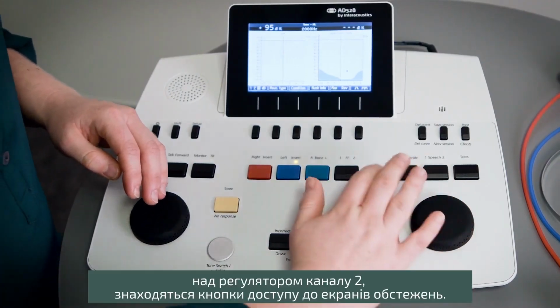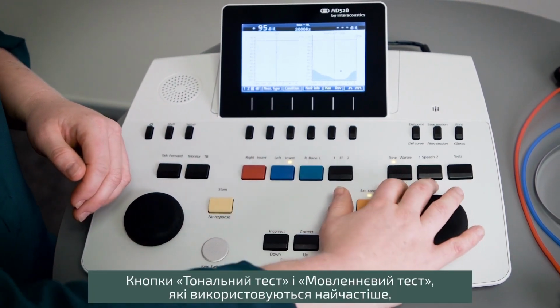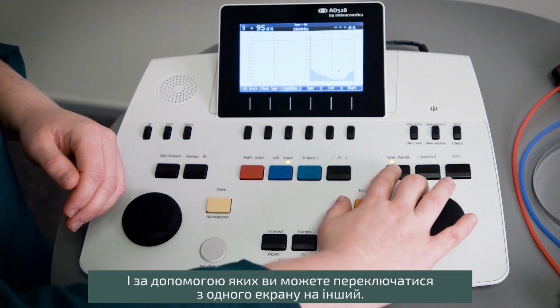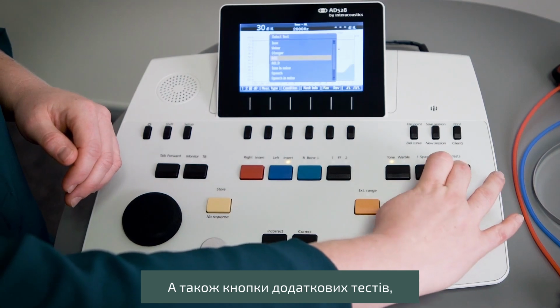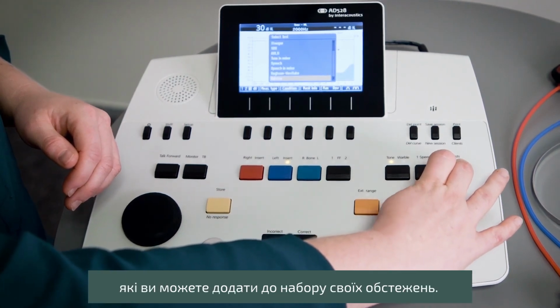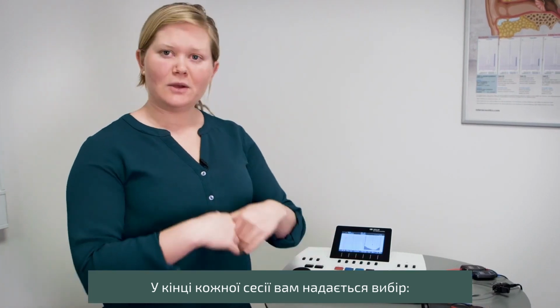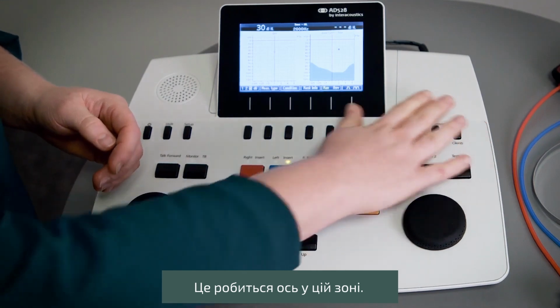Over here, just above channel 2, you have easy access to your test screens, your tone and your speech, which you use the most, where you can switch between the screens, and also additional tests that may be part of your test battery. At the end of the session you may want to print your results or save your results, and that is done from this area here.